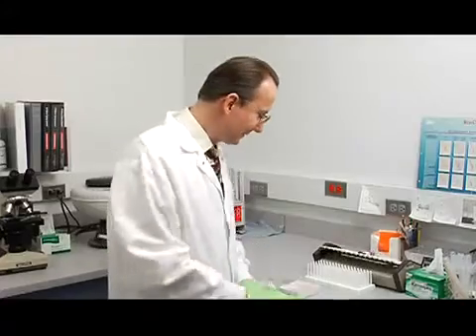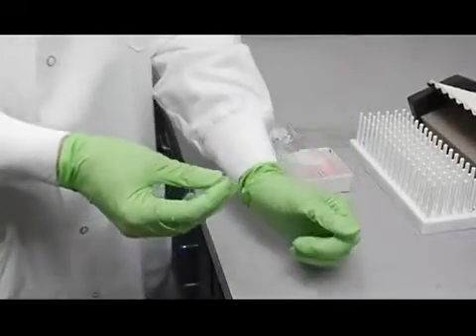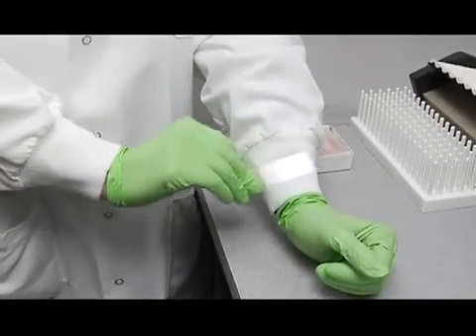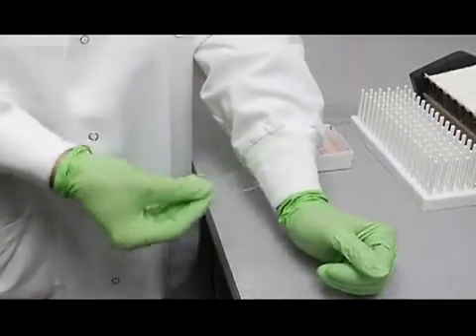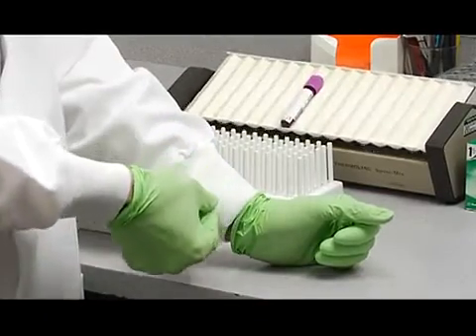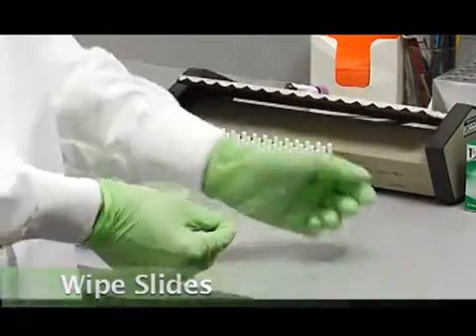Now I'll show you how to prepare peripheral blood smears. First, you'll need to take your slides, and there's always a little bit of factory film on them from the washing process. You'll need to wipe that off on the cuff of your lab coat, just like this, both sides.